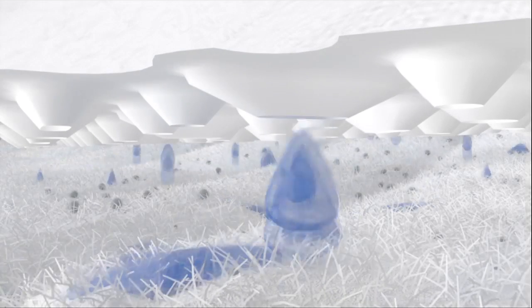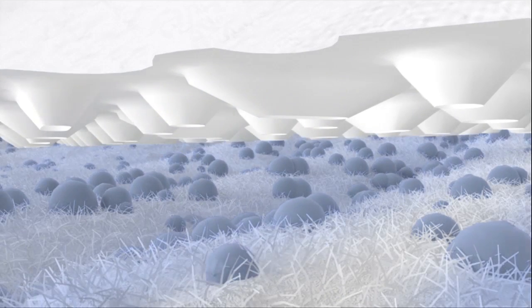The AquaDry Plus Dryness layer wicks fluid away from the skin and into the core. The linear embossing channels disperse the fluid throughout the core for maximum dryness.